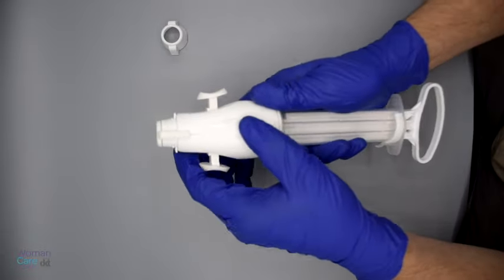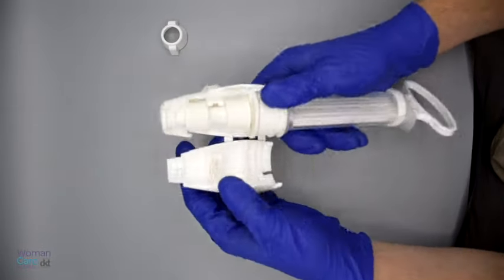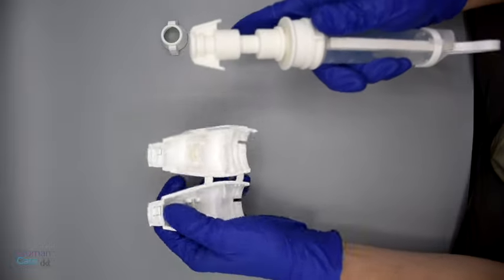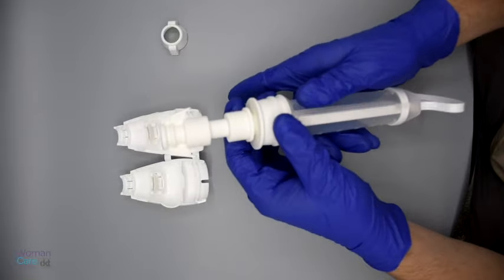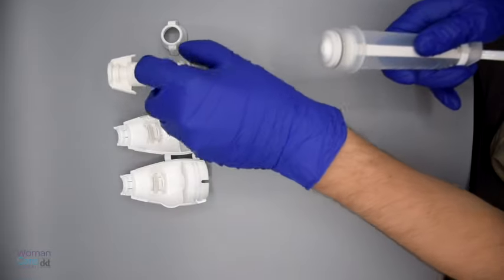Open the hinge valve by pulling open the clasp. Place your right thumb beside the clasp to apply pressure and assist with opening the valve. Then separate the cylinder from the valve.